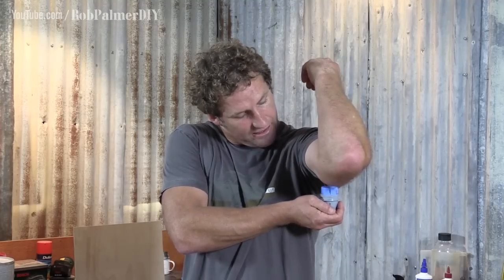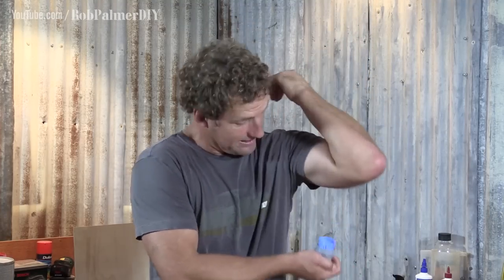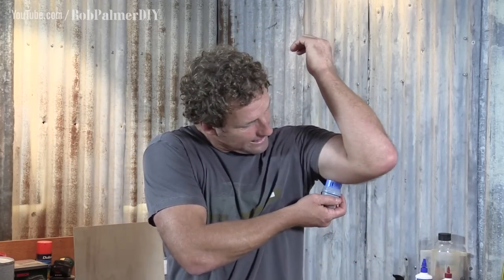I'm that excited I'm starting to sweat. I've got my spot up under the arm — that's where they're supposed to be used. Seems like a weird spot, but it's out of the way. This is how easy this is. I've shaved a little bit of hair there, because the short hairs — they hurt. So do the ones underneath your arm. That skin is pinchy. Anyway, I've gone up under there.